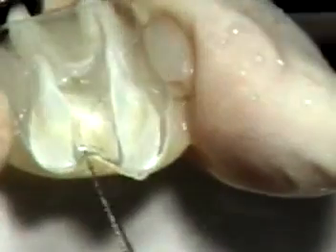You'll notice that the handpiece also has internal water spray. This is not for lubricating the canal, or irrigating the canal. This is for keeping the file clean. This is an optional feature.